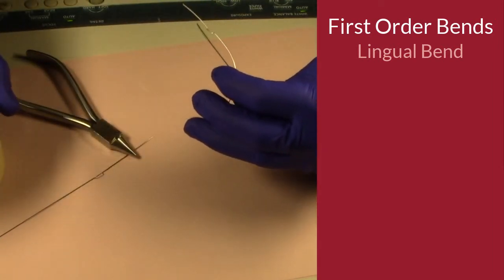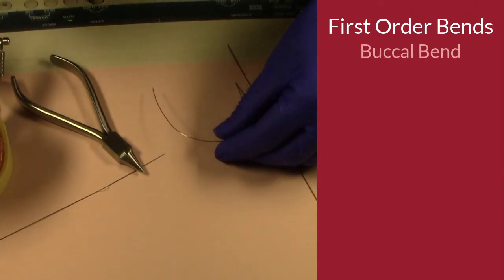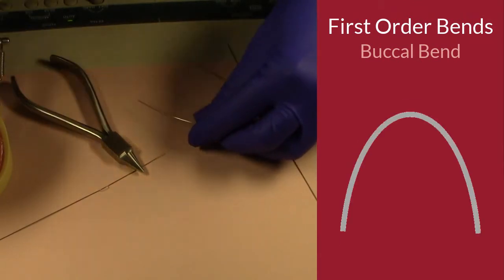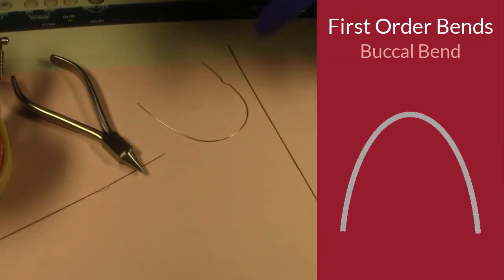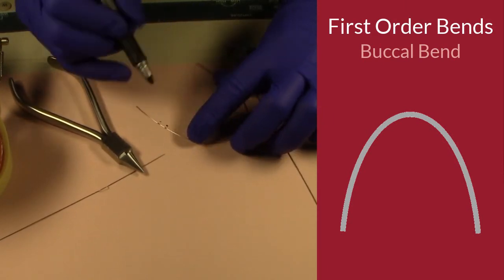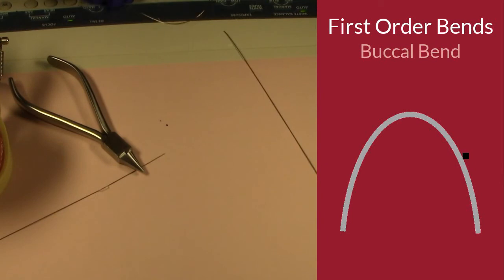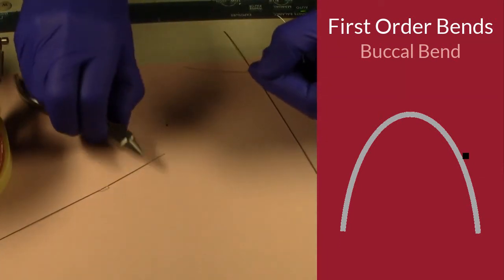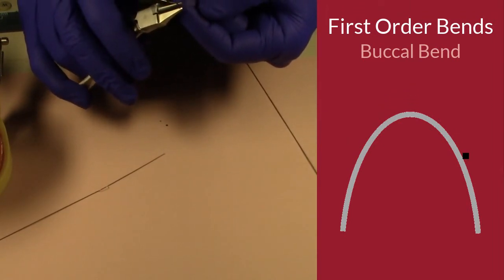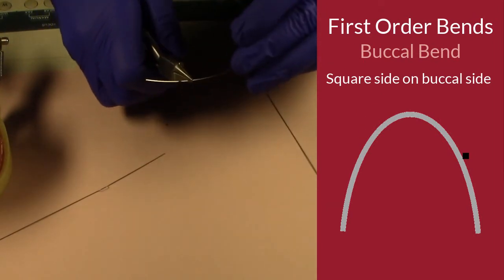Now we're going to do the opposite on the other side. We're going to do another first order bend, which is called a buccal bend. Just like it sounds, it's going to put tension on that tooth to move buccally, towards the cheek, right? So again, I'm going to mark the mesial and the distal. And this time I'm really just doing the opposite. I'm going to put the square part of the plier on the mesial dot, just mesial to that first dot, right? But my square part of my plier is going to be on the buccal side of that arch wire. That makes sense, doesn't it?